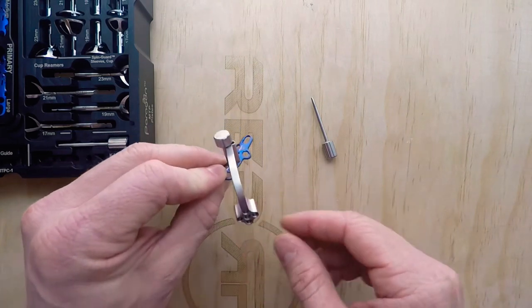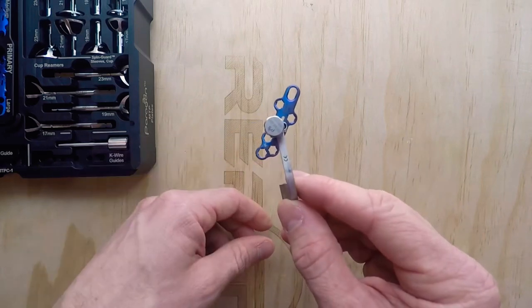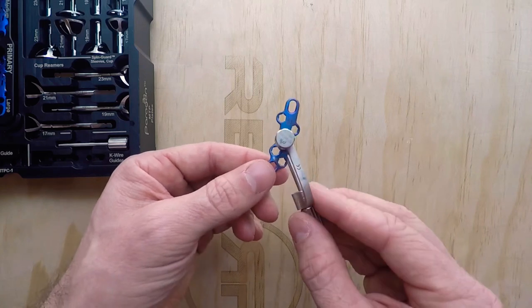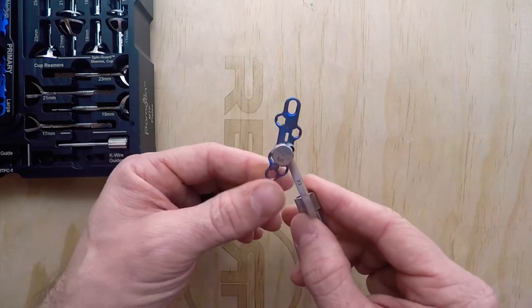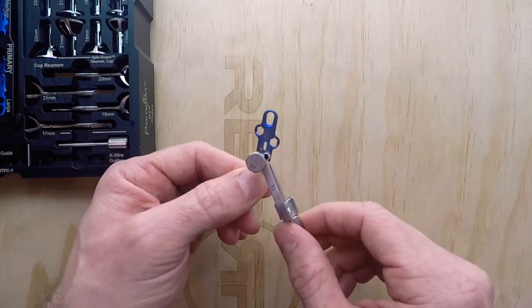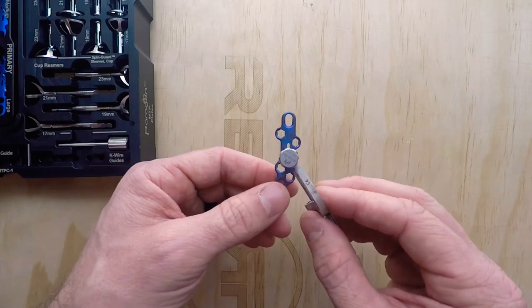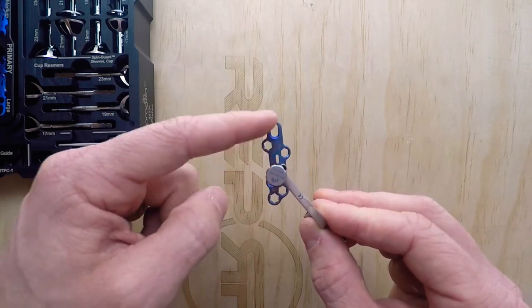The precision guide also ensures that the K-wire and the screw will miss every single one of the plate holes. Some physicians who usually go with a 3-0 cannulated crossing screw and 2-7 screws in their plate are actually upsizing to a 3-5 or even a 4-0, because they know every time they throw this wire and like it on x-ray, no matter if you use a 3-0, 3-5, or 4-0 cannulated screw, it's going to miss all of the holes. Some surgeons have also sized up their plate screws from a 2-7 to a 3-5 or 4-2 — all of our plates accept all three of those screws, and you can mix and match. You could go all 2-7, all 3-5, or a mixture of 2-7 distal and 3-5 proximal — it's totally up to you.